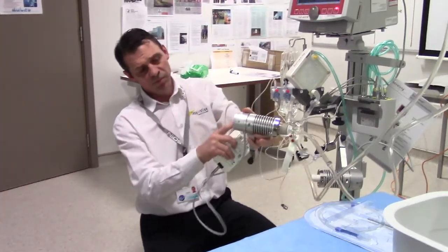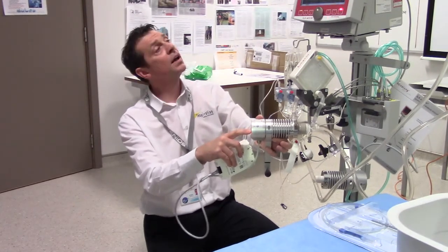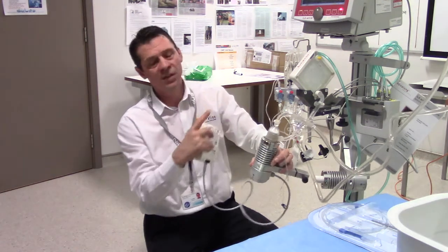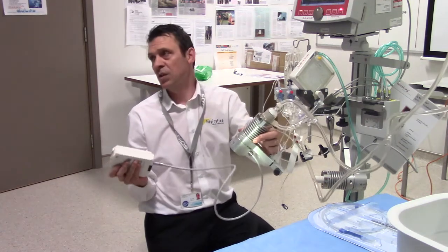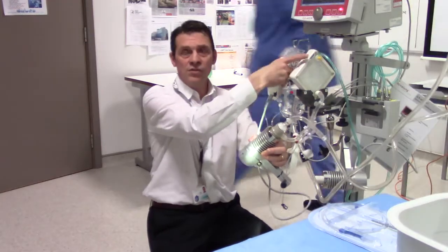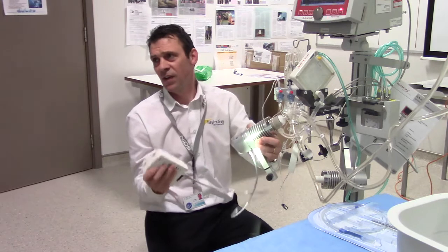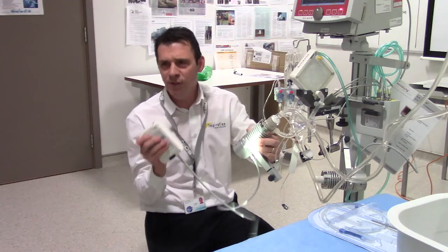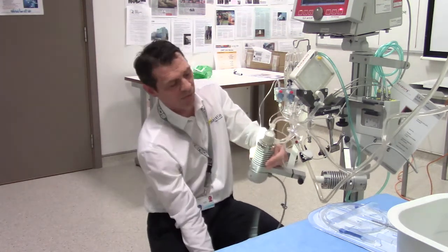You could press the play button and increase the dial to whatever impeller speed you want, and that will spin and give you blood flow. You could arguably run this just at the bedside with the transducers off — as long as you've got your oxygen still attached — flying by the seat of your pants. I don't know when you'd ever find the need to do that, but it's a possibility.